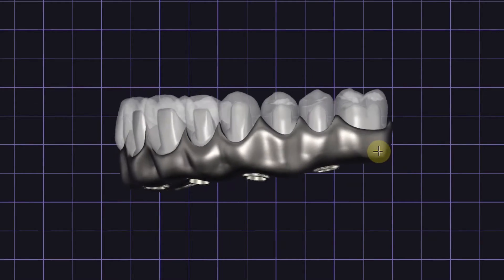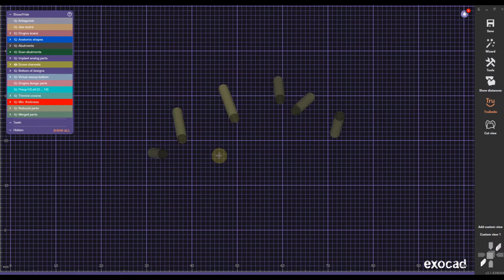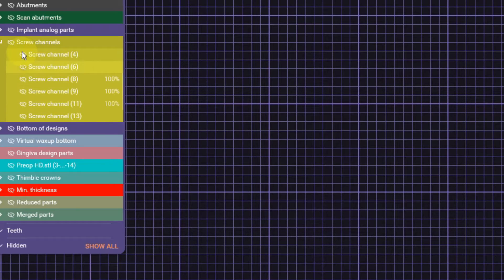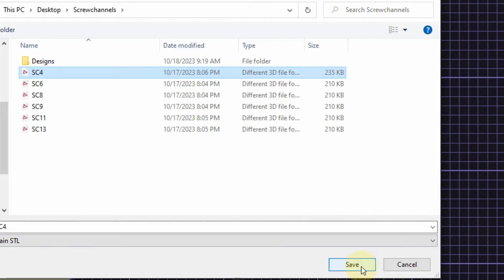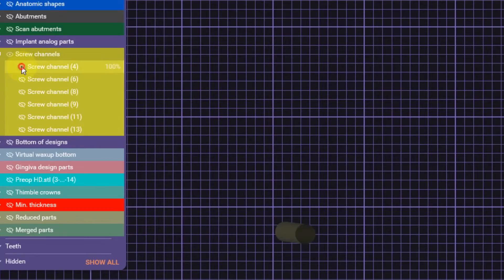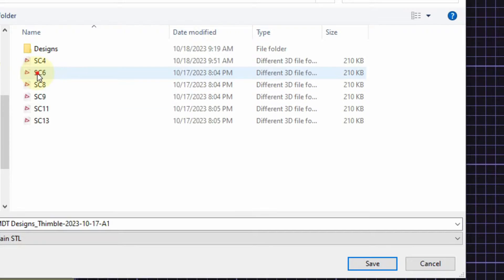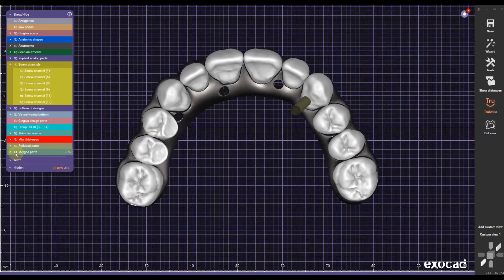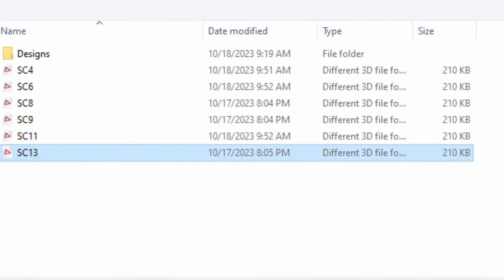The main design of the framework and the crowns is basically done, but if you take a closer look at the crowns you'll notice that they don't have any screw holes. Therefore we're going to go into another very important step: how to cut the screw holes into the crowns. What you need to do is isolate the screw channels so they are only visible. In this case because we're dealing with a bridge, we have to isolate and export them one by one — if you try to export all the screw channels at once and use them as a tool to cut holes into the crowns the operation will fail. The screw channels on number 8 and 9 are going right through the framework so we don't actually have to export them; we're going to continue with 11 and 13.